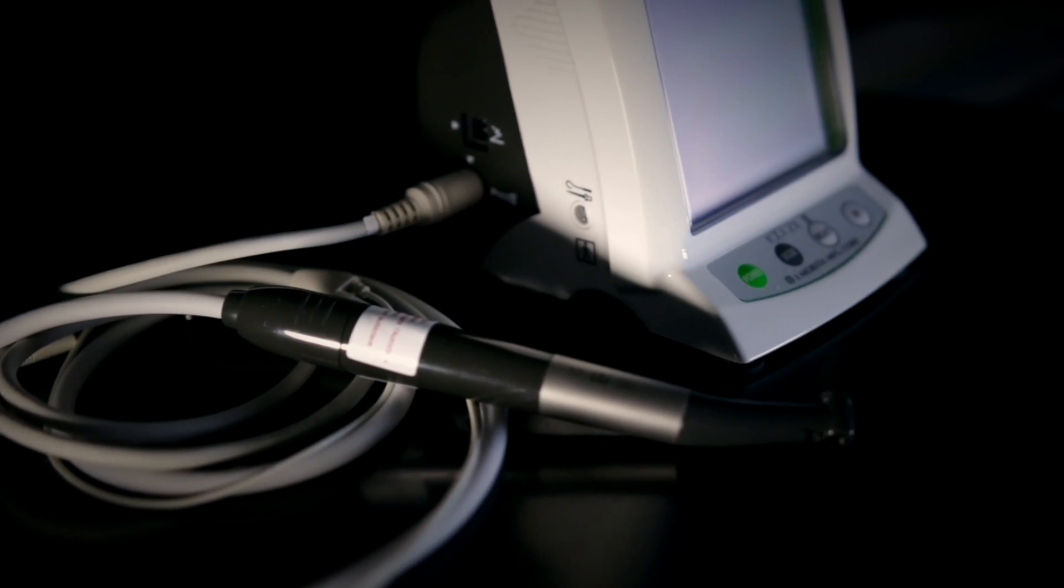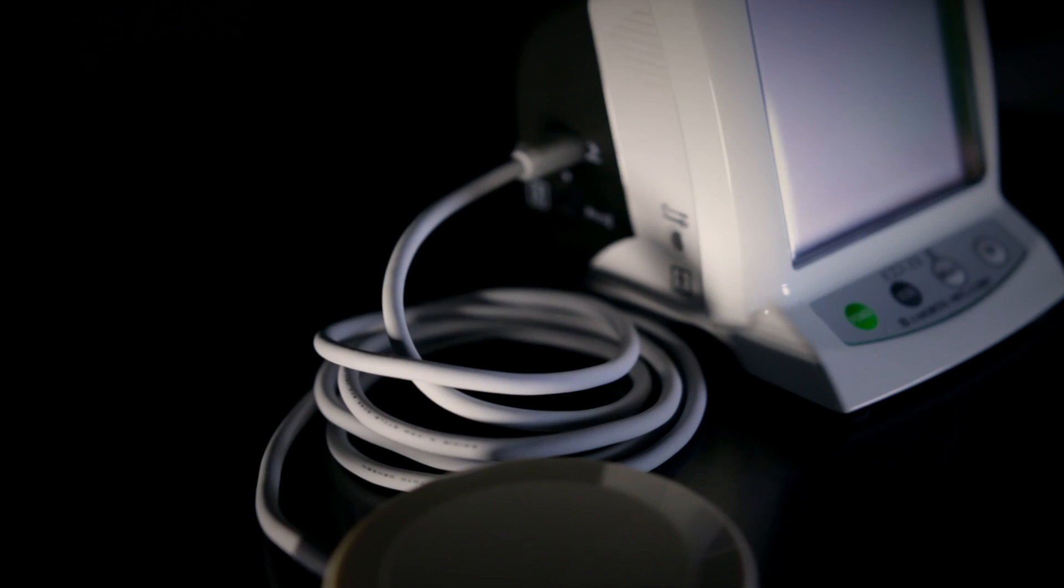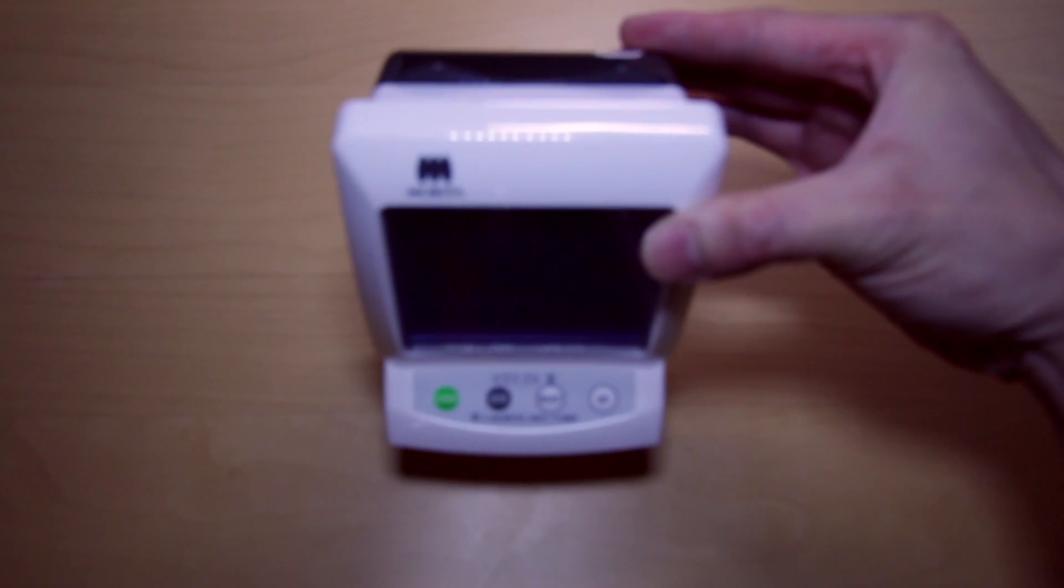Then you can attach the slow speed handpiece along with its foot pedal and cords for the apex location. This is how you broadly get things started.